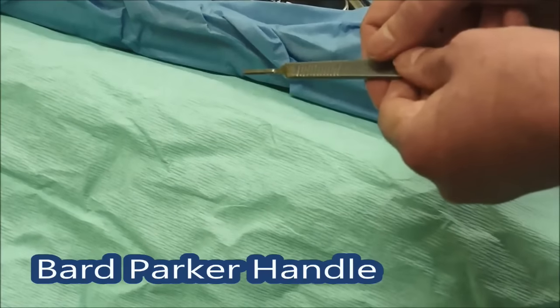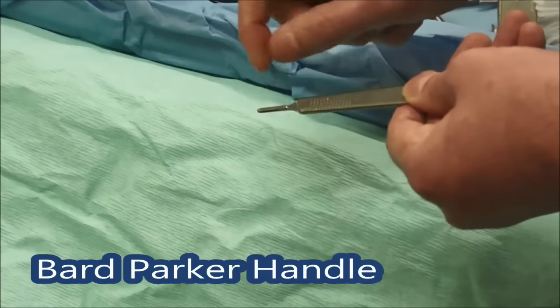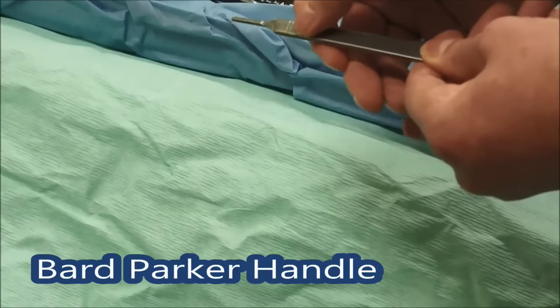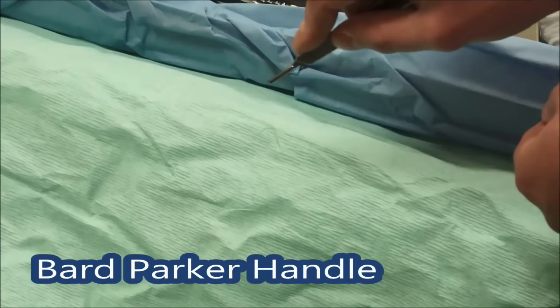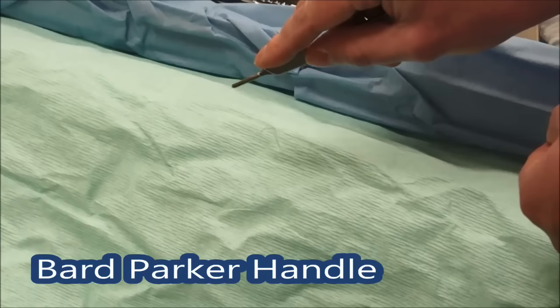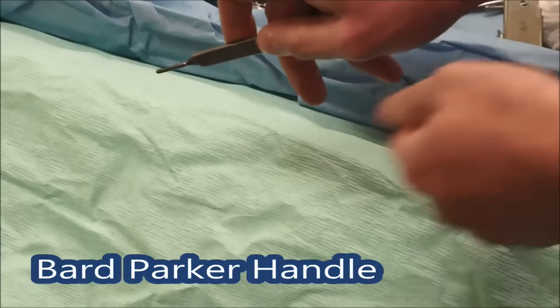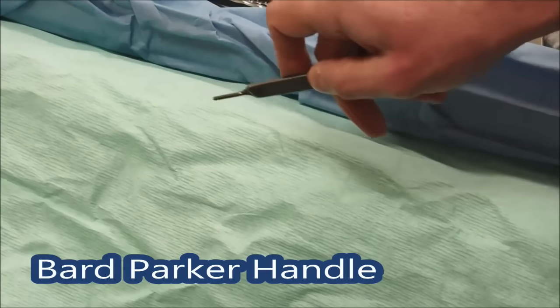This is one of the scalpel handles, with the blade mounted here. You never hold the blade — you get a clip and slide it on. When you look at a scalpel blade, it's got a long hole in the middle that matches and clips onto this oblique little ridge. The scalpel handle is corrugated here so it's non-slip. You hold it between your index finger and thumb, with your index finger over the top and your other finger behind. You don't hold it like a pen — you drag the blade along the skin in one reasonably firm movement, no little cuts.